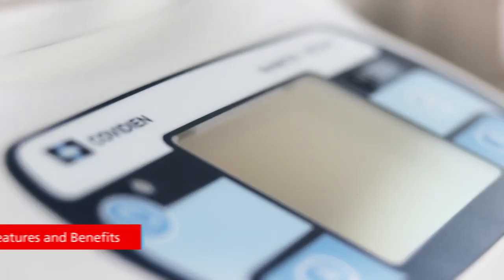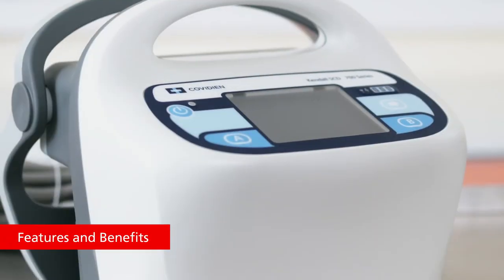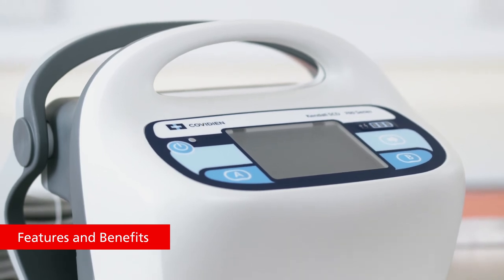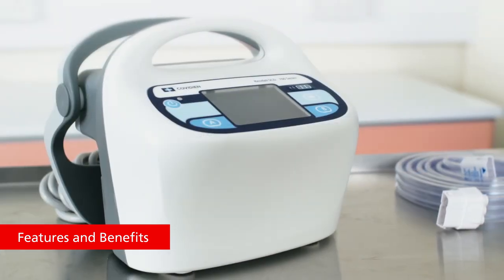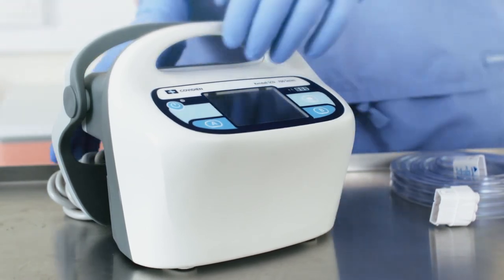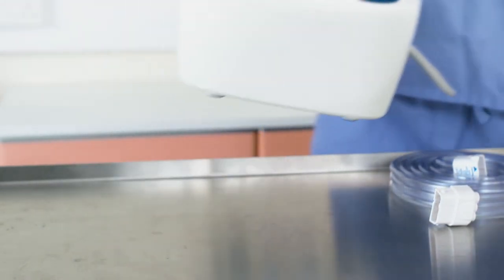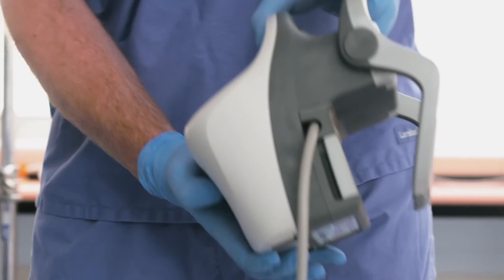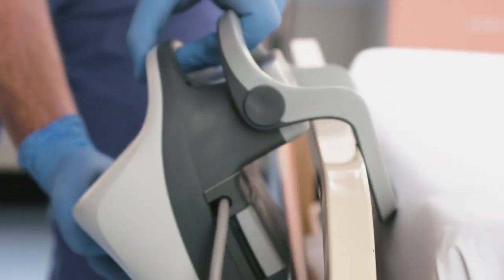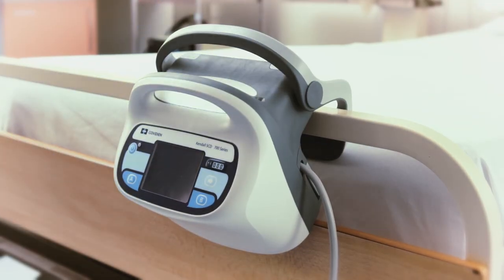The Kendall SCD 700 series controller is a compact, lightweight, easy-to-use all-in-one controller designed to address functionality and provide convenience. The controller has an adjustable bed hook to make attachment to a patient's bed easier and more secure.